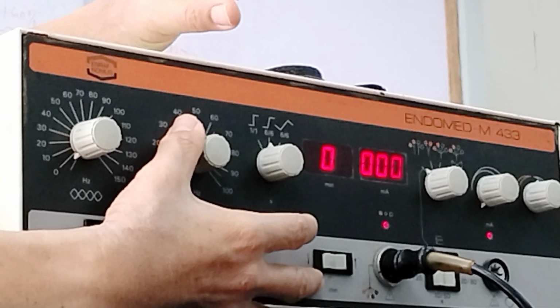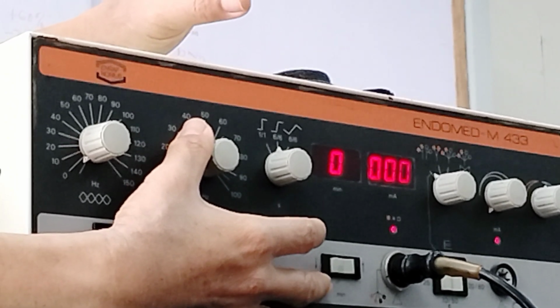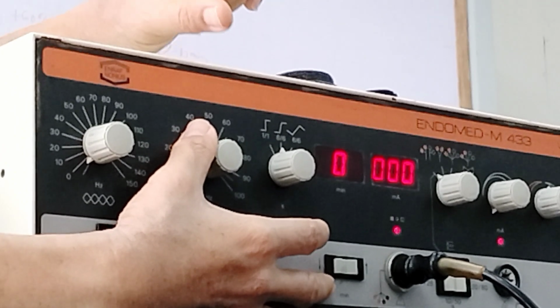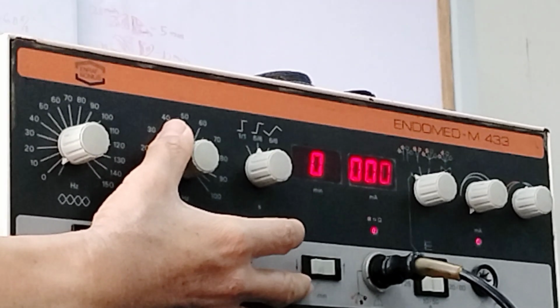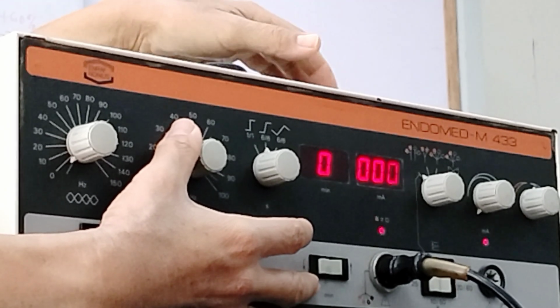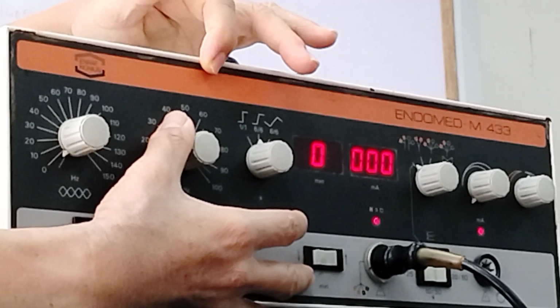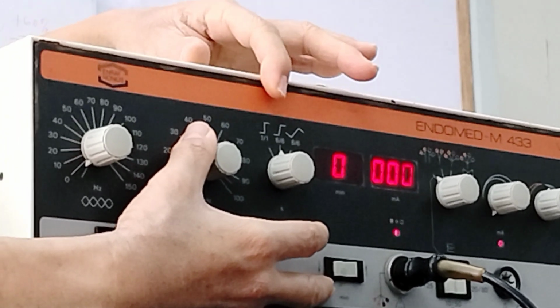So some will vary the frequency so that the frequency range can target the frequency at which the structure will respond and be stimulated. So those are some of the reasons why they tend to vary the frequency. Again, it's up to you to decide whether you have a constant frequency or a varying frequency.